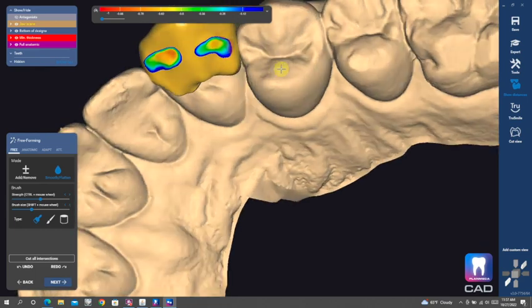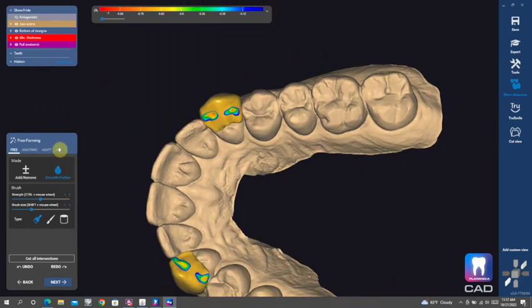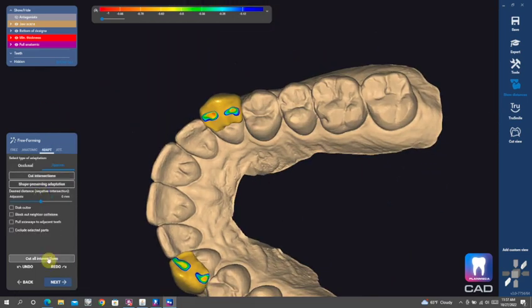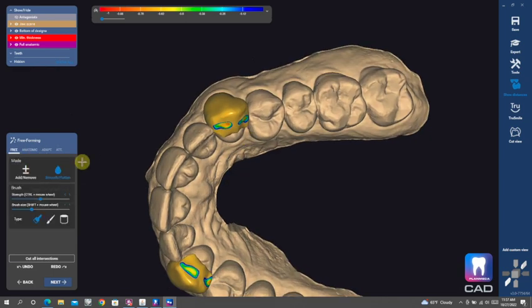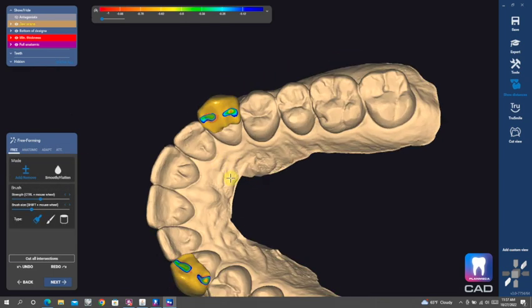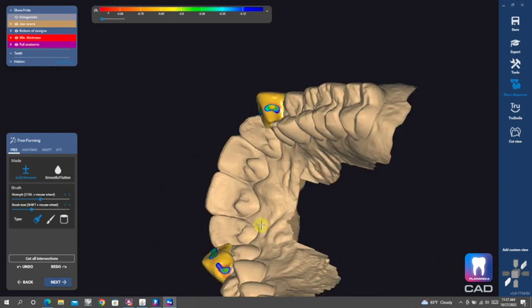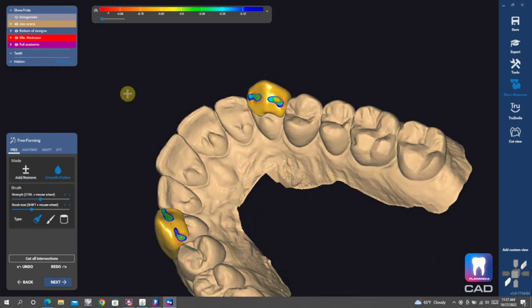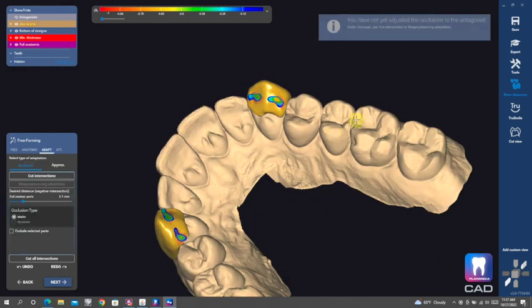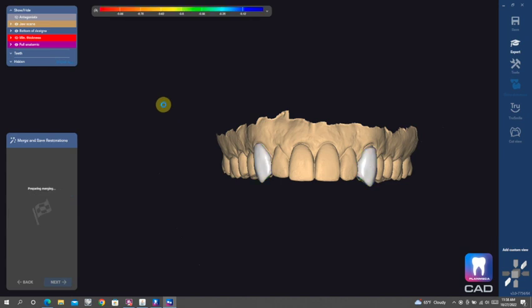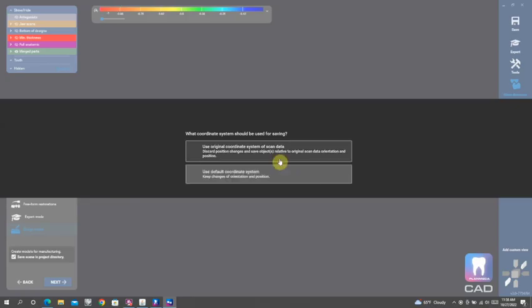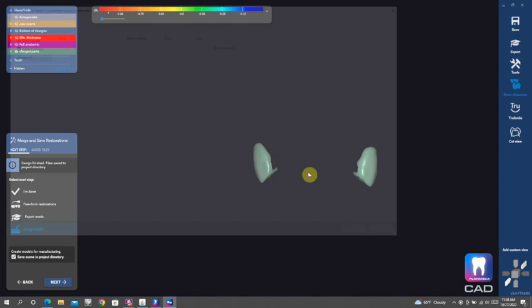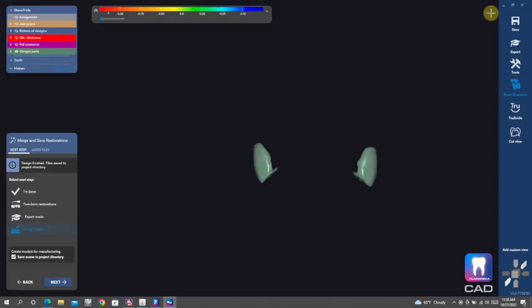So this is a real quick design, just quick and dirty, trying to get something that you think looks pretty good. And once again, don't get too hung up on the occlusion. You're not going to be eating in these in all likelihood. If you do want to eat in them, maybe you should keep them as veneers and just keep them all along that facial surface.